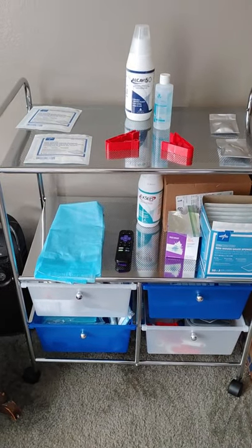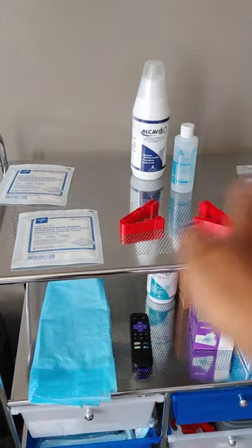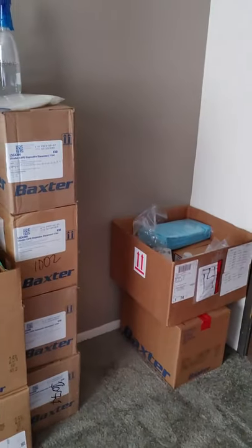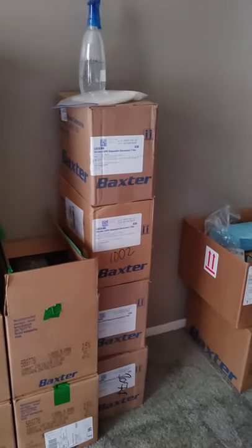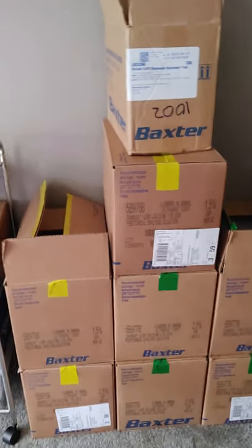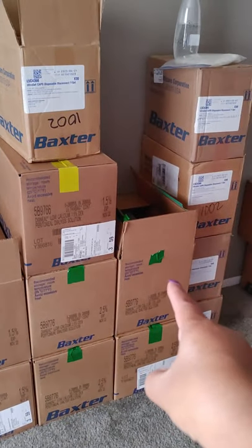You want something metal to use because you can't use wood — wood can absorb liquid and bacteria, where metal like this gets wiped down every day, six times a day. Here are my supplies: I have a whole bunch of drain bags. I probably won't have to order them next month because I have way enough. This is what I have left until Friday when Nate's coming to bring my supplies for the next month. This box is almost empty — it has one more bag in it.